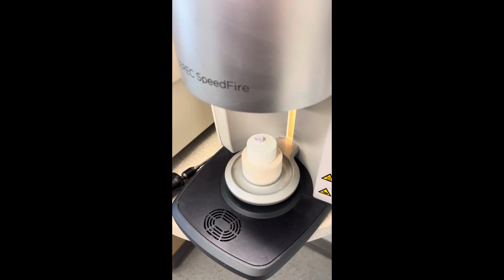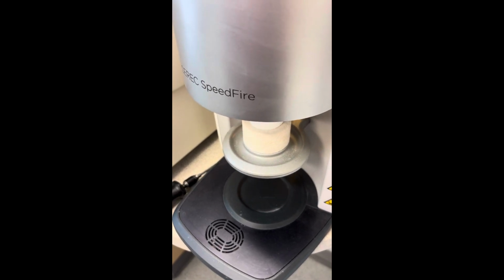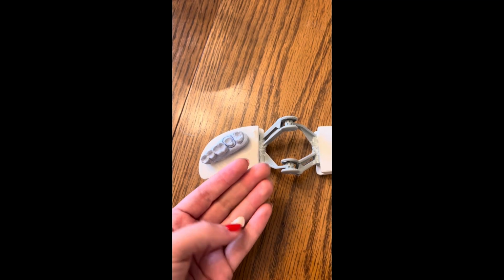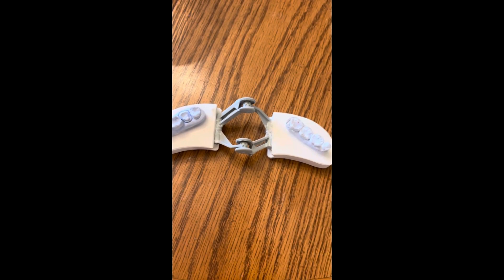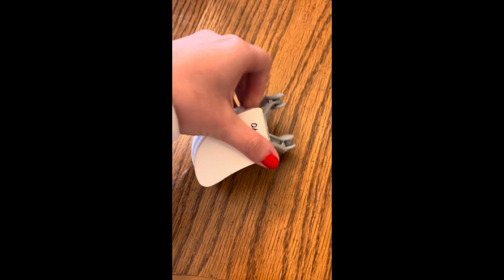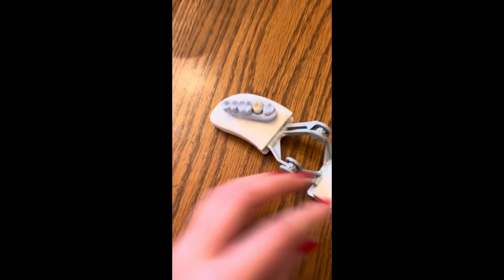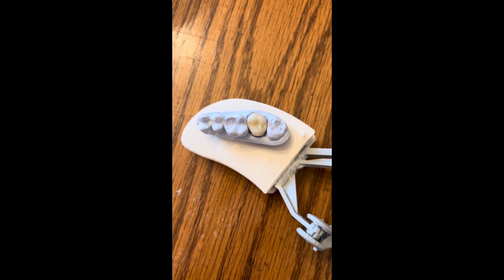And once it's done baking, it will come out and be super, super hot. So it'll have a timer counting down for how long we should leave it. So I didn't record the glazing part, but as soon as it's done baking, you'll stain it. So I just put a little bit of brown staining on the occlusal, as you can see here, before I glaze it. And we have spray glaze, so you just shake it and spray the glaze onto the crown after it's been fired. So stain first, glaze second, and then you put it back on the table of the speed fire and hit continue job now, and it will put it back up and glaze it.